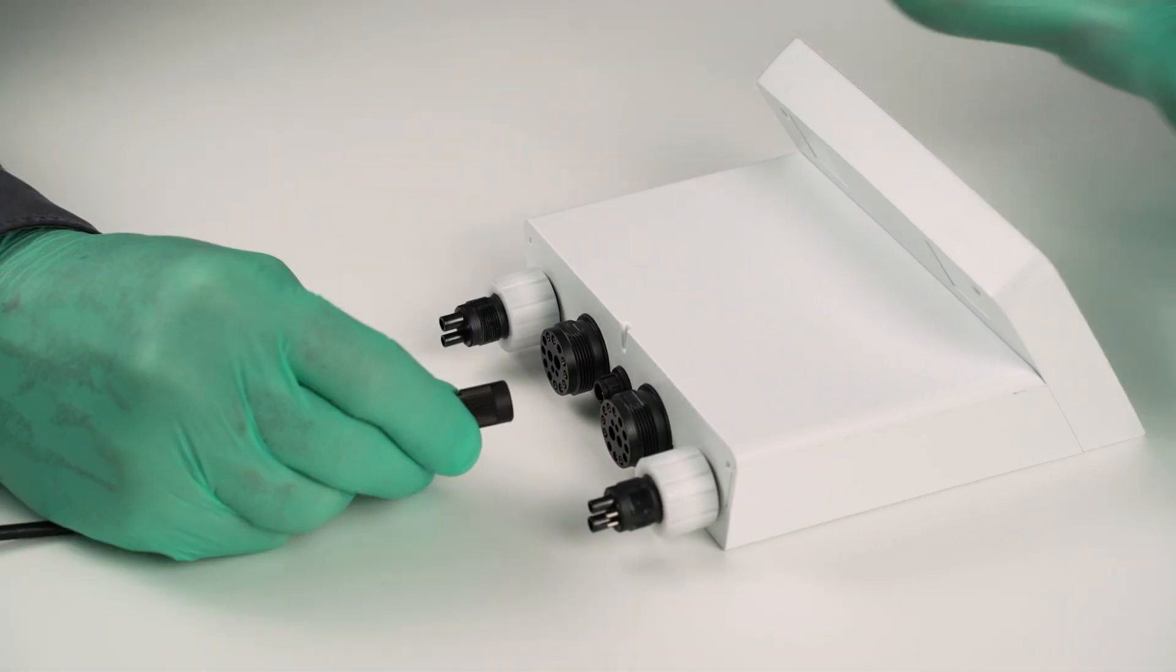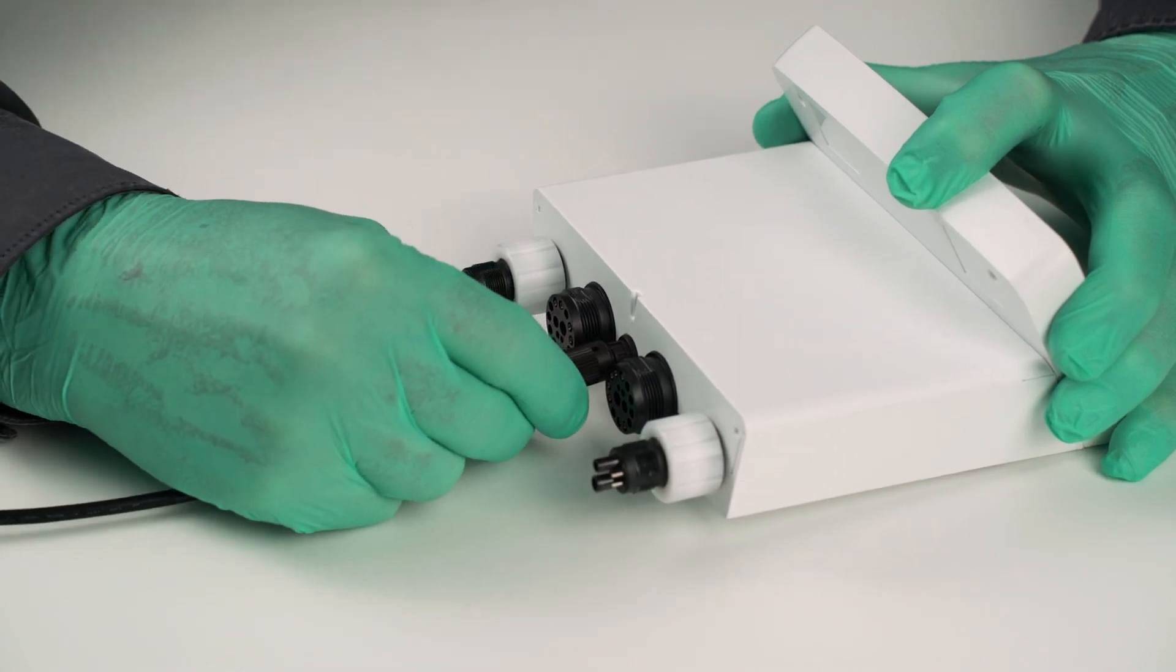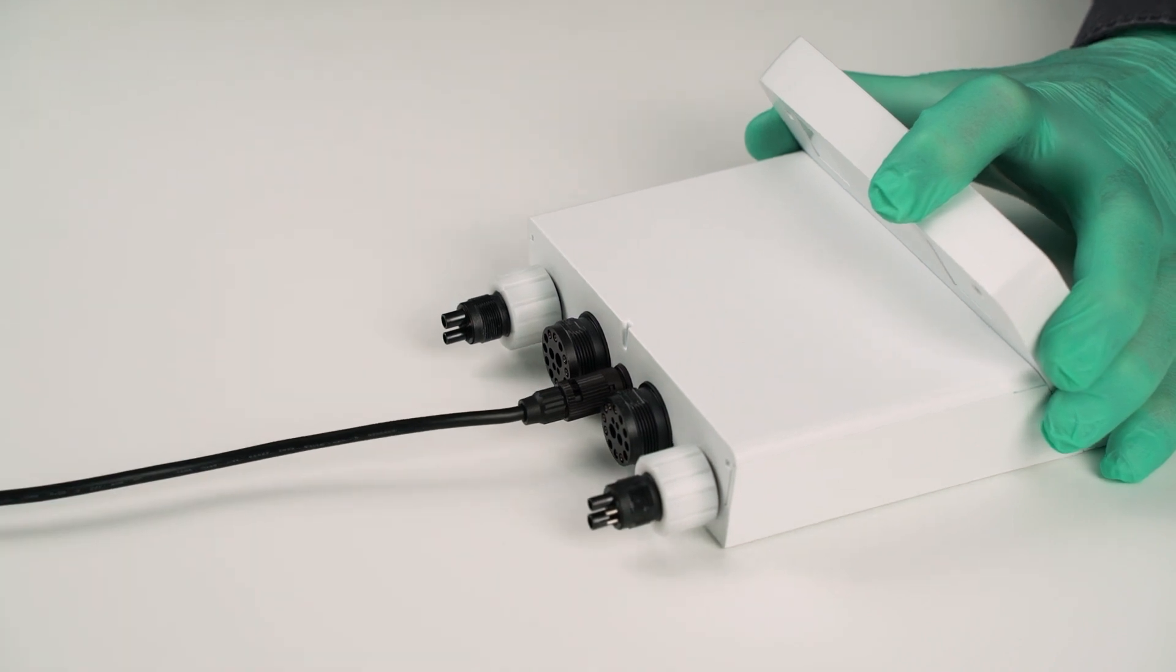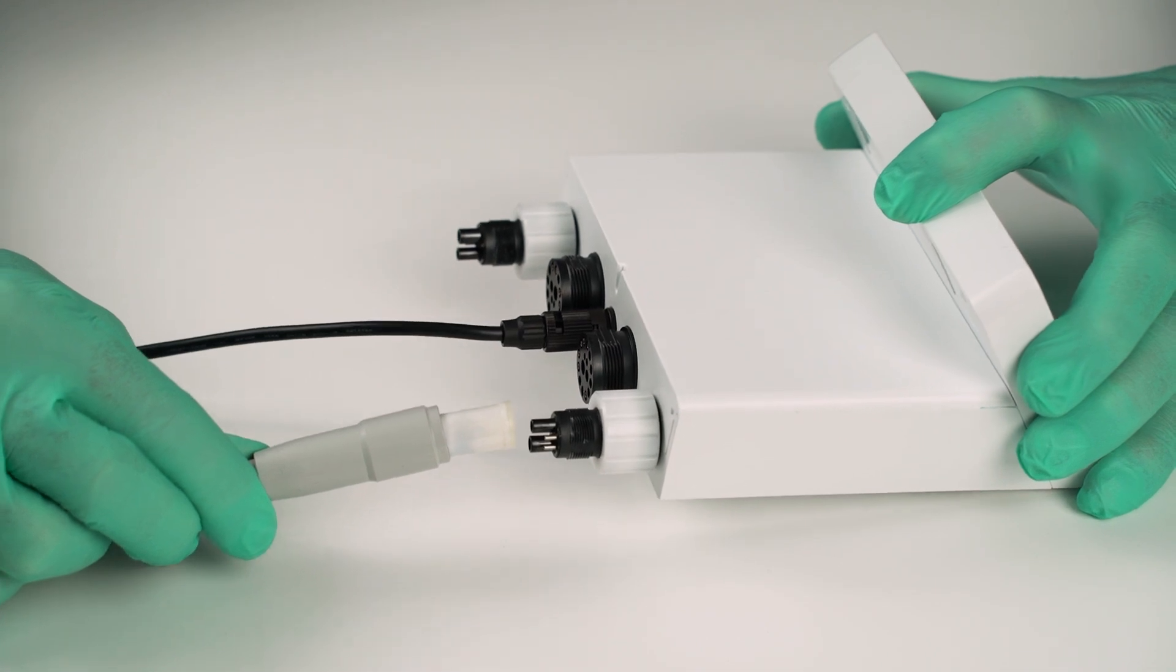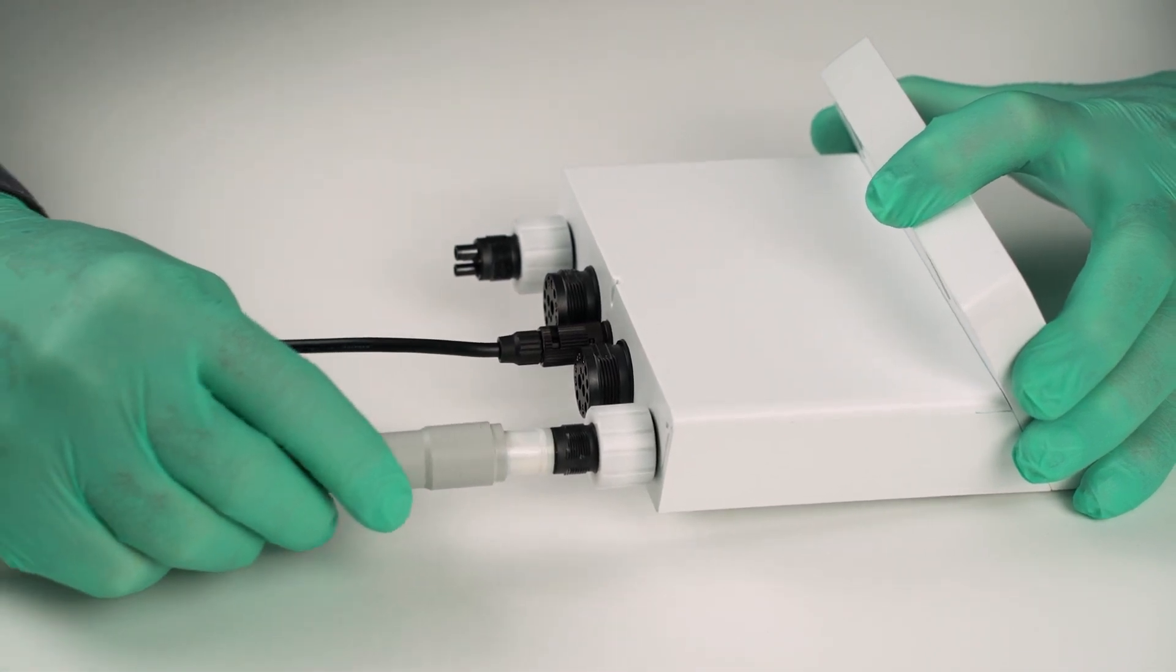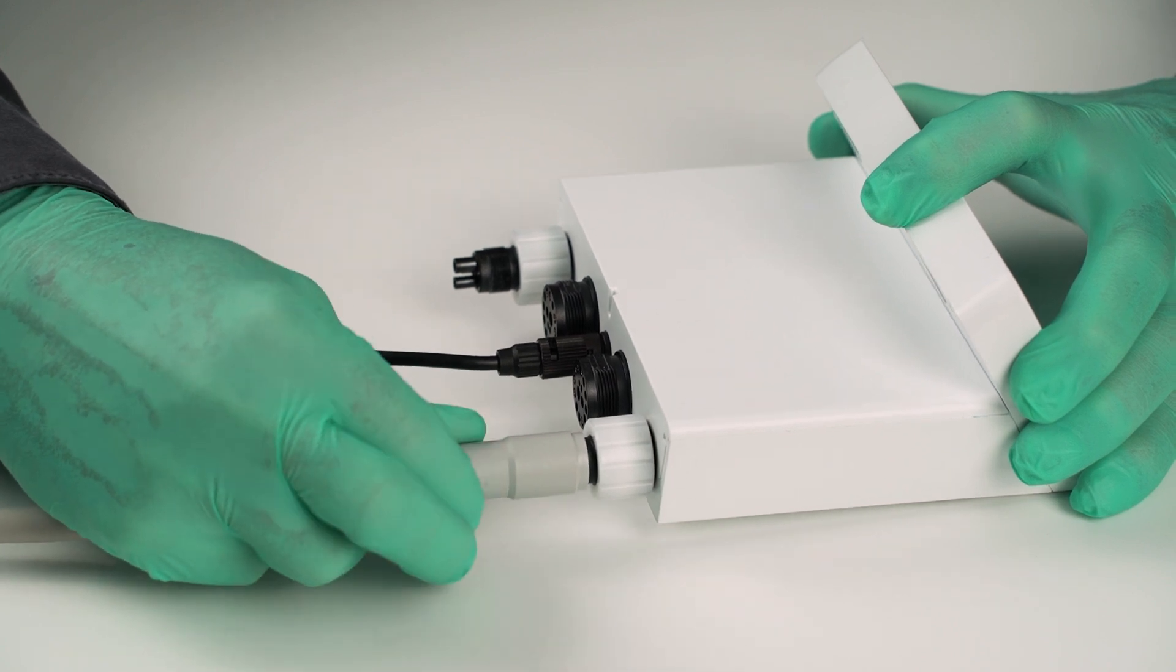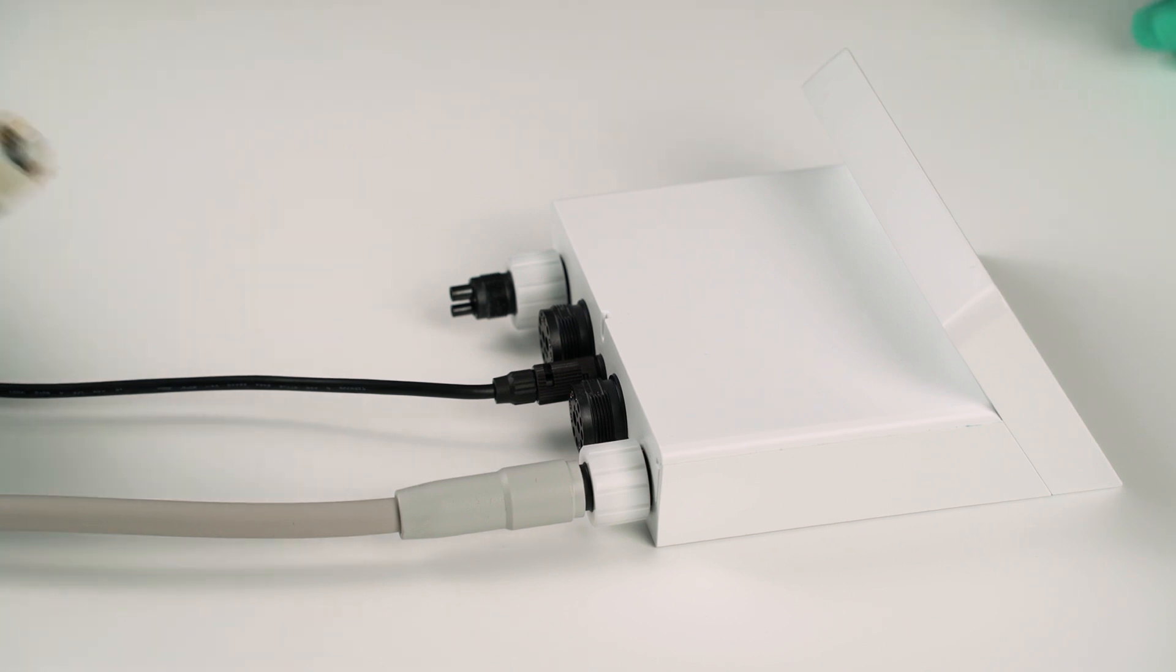To set up the system, connect the plug from the transformer of the power supply into the connector in the middle of the Electromatic and turn it clockwise to lock it. Connect the 4-hole, 5-hole or 6-hole ISO turbine hose of the dental unit into the left media input plug and tighten it. It is marked on the ground plate with M1.